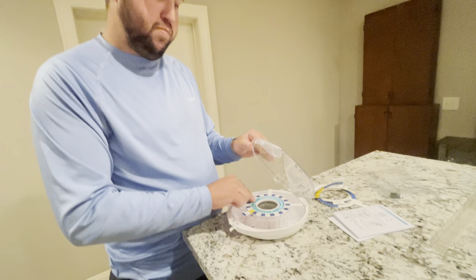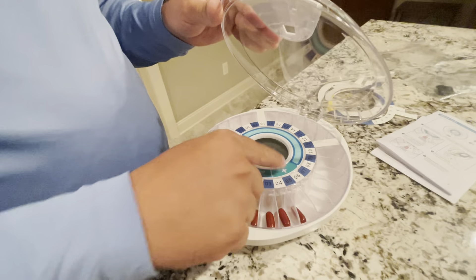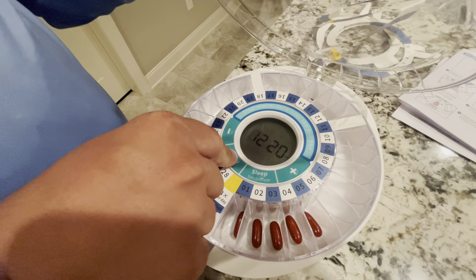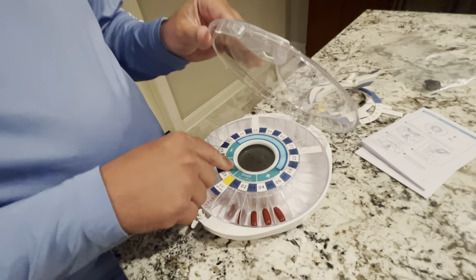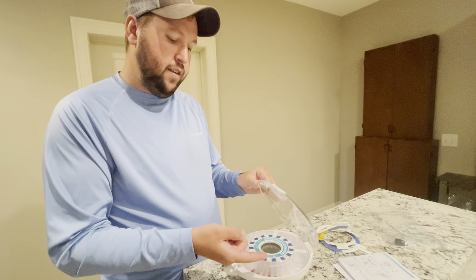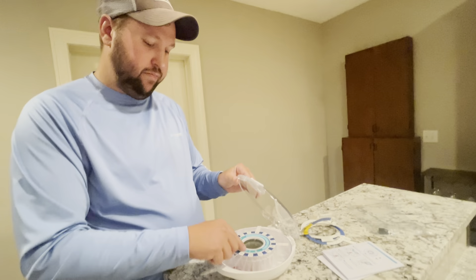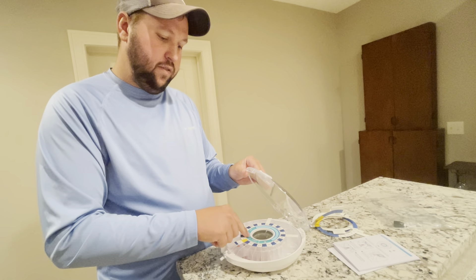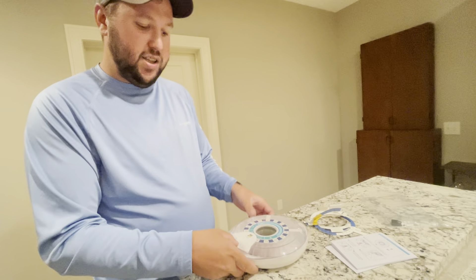It has the minus button for the volume and plus for the volume. You also have your menu — if you press the menu, you can see you have your different options. If you want to make it sleep so it doesn't do anything, you can see now it's ready for the pill. Then all you have to do is go to the menu and press that down.